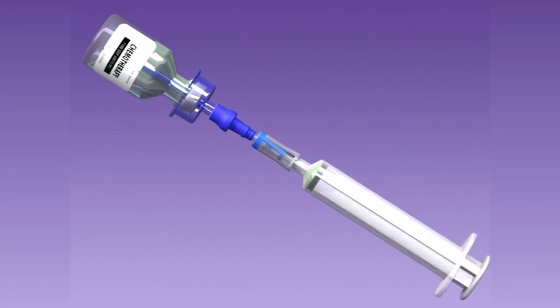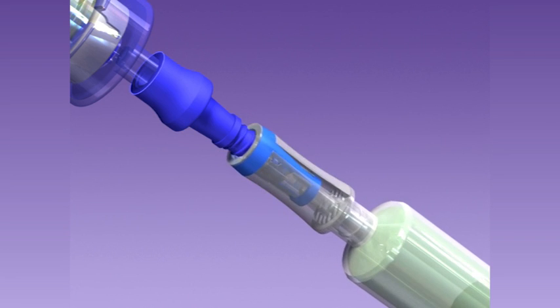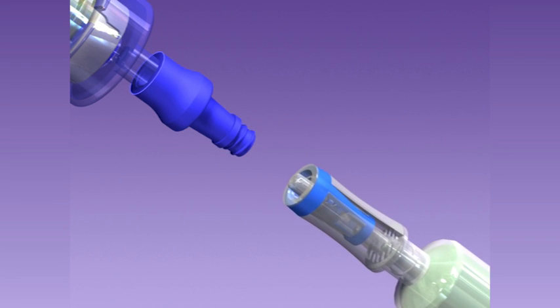The Spiros eliminates the use of needles and closes the system to prevent exposure to hazardous drugs during their preparation.